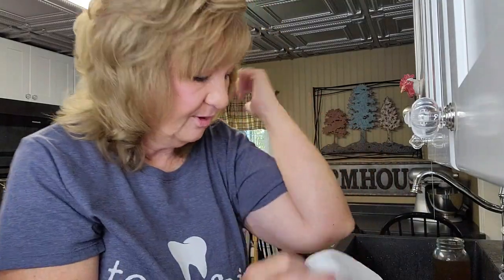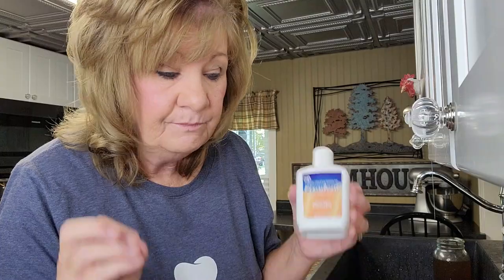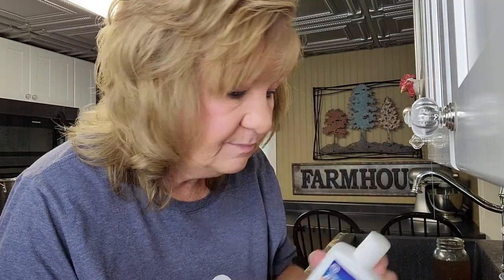I don't normally use the powder on the top. That feels so much better — it's not pushing out and I don't feel so much like gagging, so that did something. I think maybe I need to do just a little bit more on the sides. Here's my setup: toothbrush — as soft as it can be — nail files. Have them on hand when you get your dentures, because by the third day in I filed a little bit and it took the pain away immediately. Don't be afraid to file just a tiny, tiny bit — not a lot. You can always take off more later. Love this Fixadent Ultra — these are my go-tos right now.